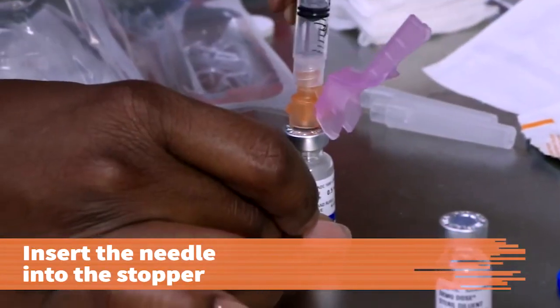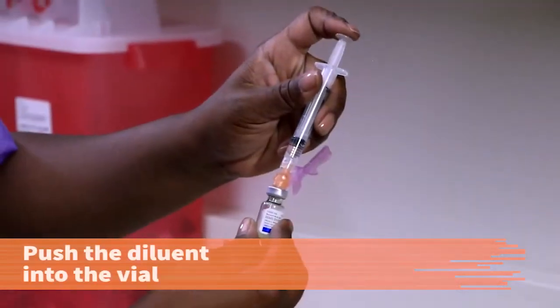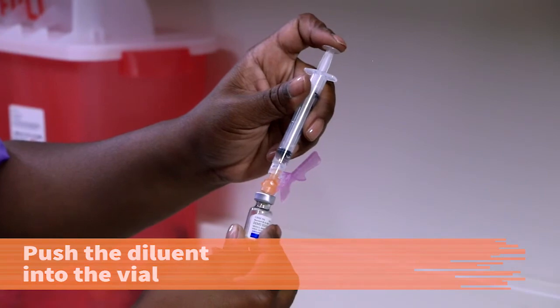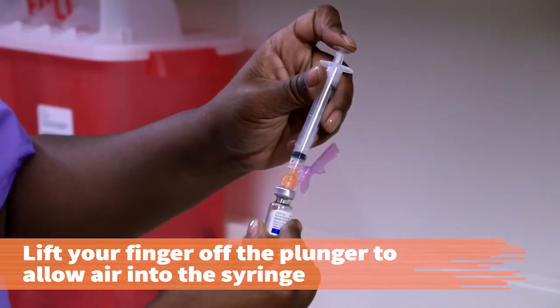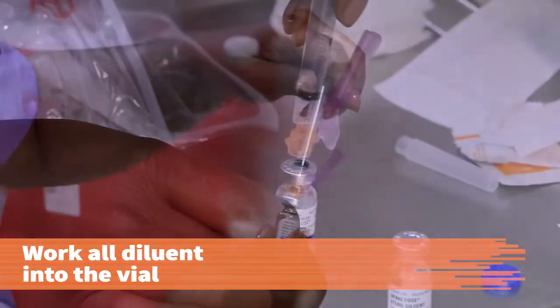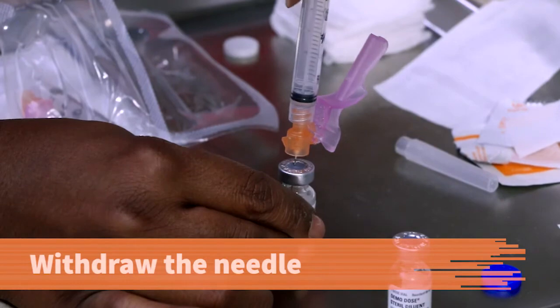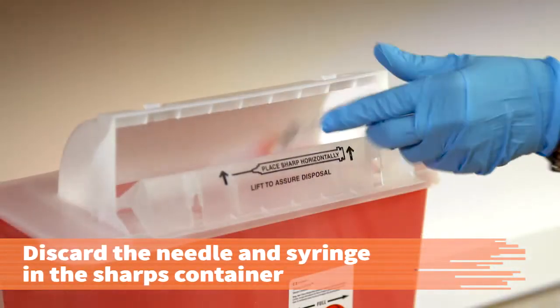Insert the needle into the stopper of the powdered medication vial. Push the diluent into the vial. If you meet resistance, don't use force. Lift your finger off the plunger and allow air to fill in the syringe. Gradually work all the diluent into the vial. Withdraw the needle from the vial. Discard the needle and syringe in the biohazard sharps container.